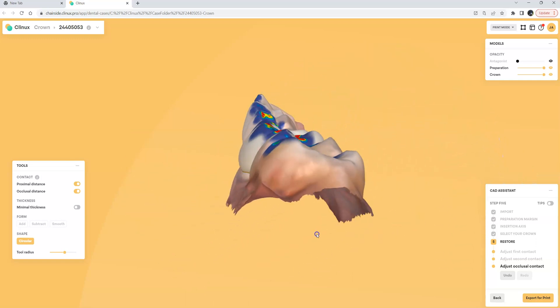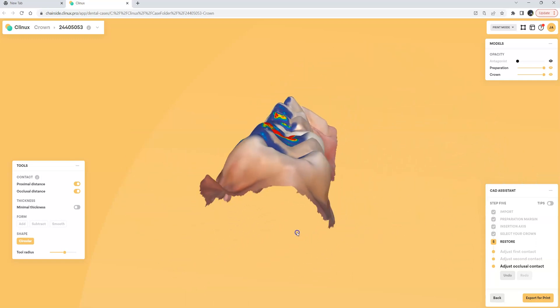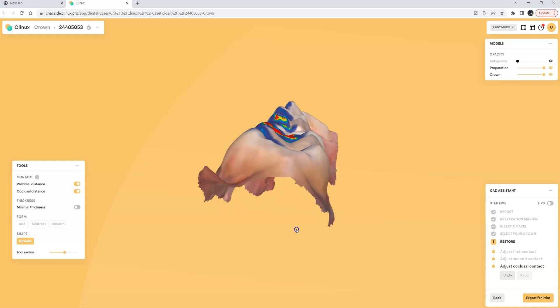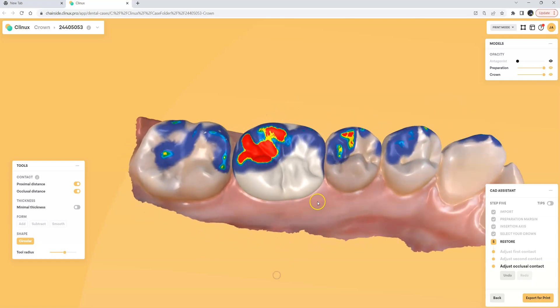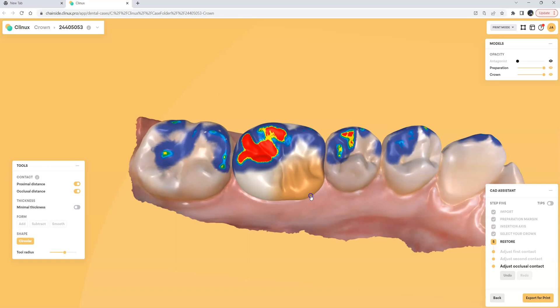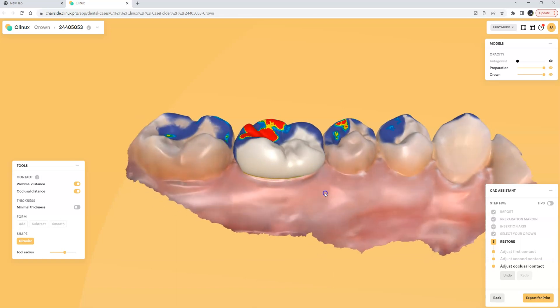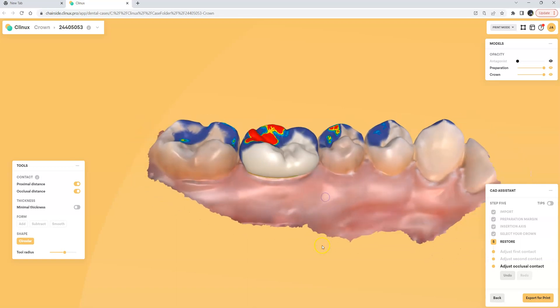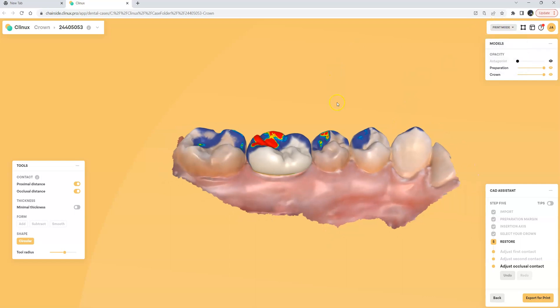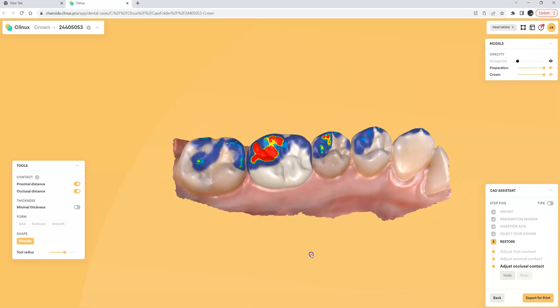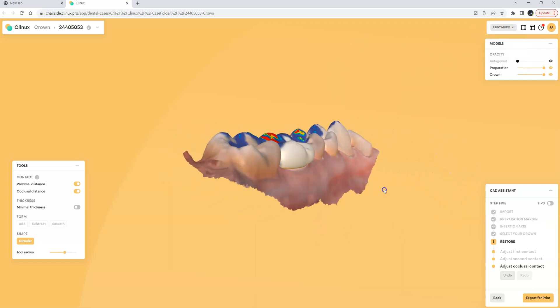Overall the tooth I believe is looking pretty good and everything's pretty matched up with the adjacent teeth. Let's maybe pull this out a little bit here and once everything is complete and ready for printing I can come up here and I can choose either mill or print in this case I'm ready for print. Everything's been designed and I'm ready to go.